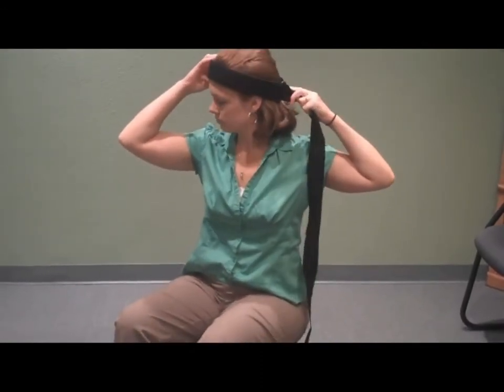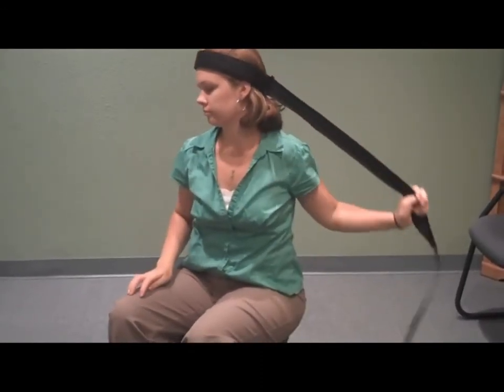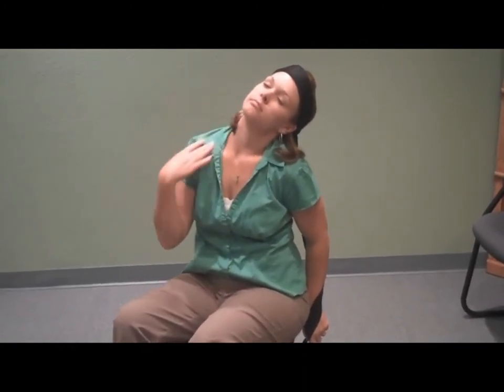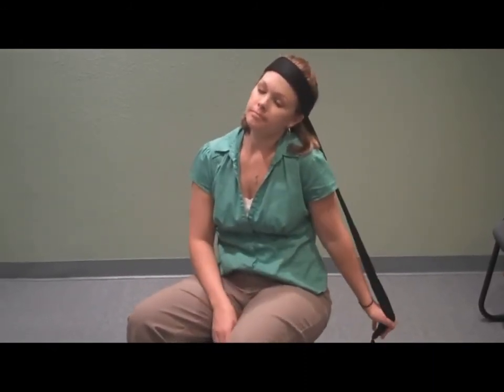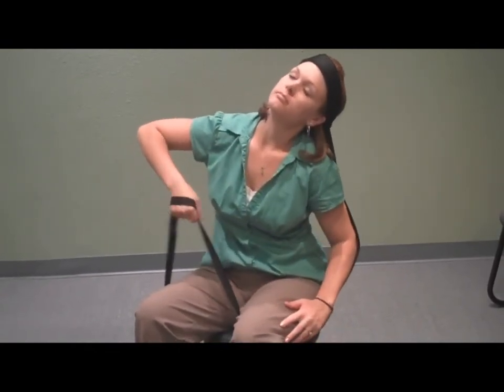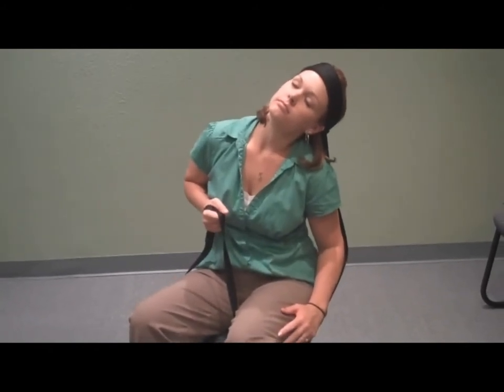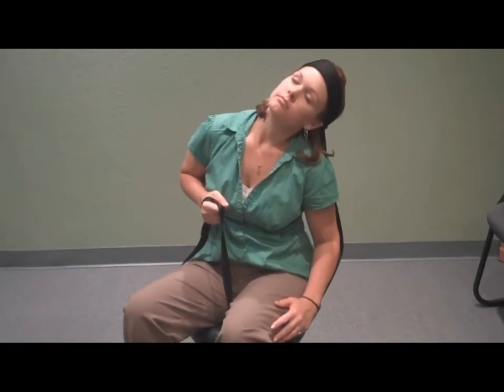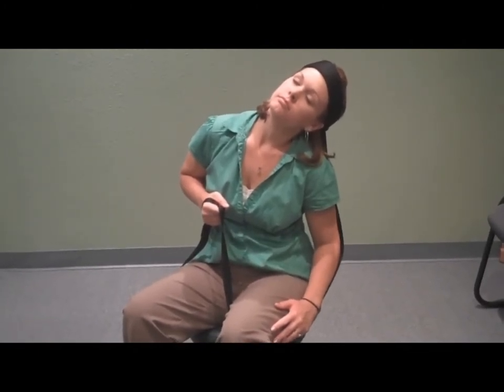She'll go directly 30 degrees behind where she just was, pulling kind of behind her and to the side. She'll be feeling this in the muscles towards the front part of her neck on the opposite side of where she's pulling. After her body has become accustomed to it, she'll again put it under her leg and use her elbow — it kind of helps push it back — and she'll feel that stretch towards the front on the opposite side.